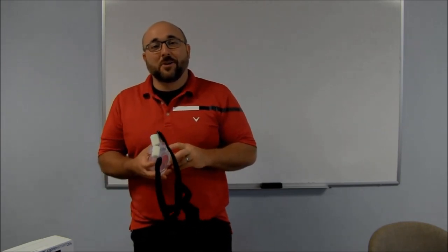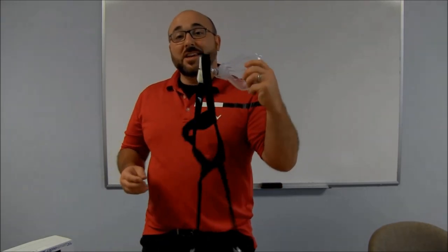What is up everybody? Welcome to the RT Clinic. Today I'm going sideways because I have a special experiment to see what changes happen to available oxygen and exhaled CO2 under this mask and other masks. I've got some cool tools and we're going to see if it changes.